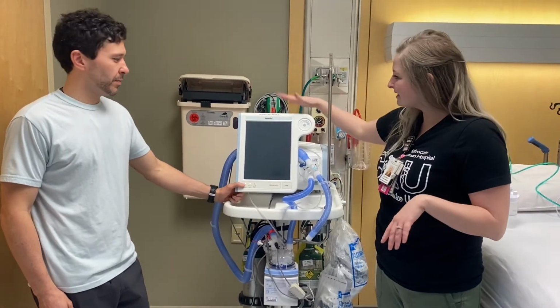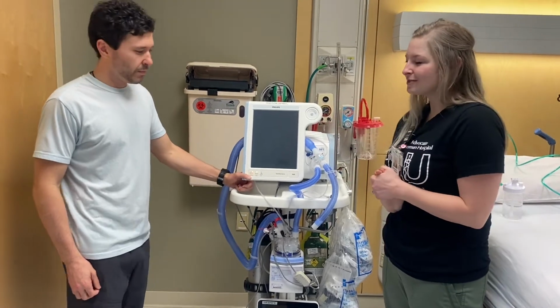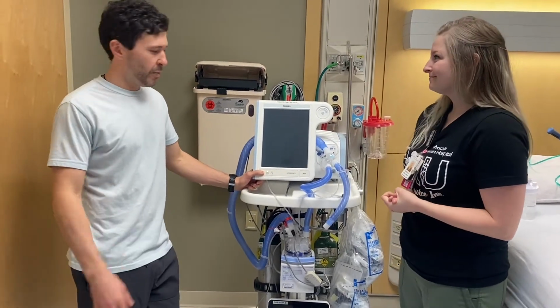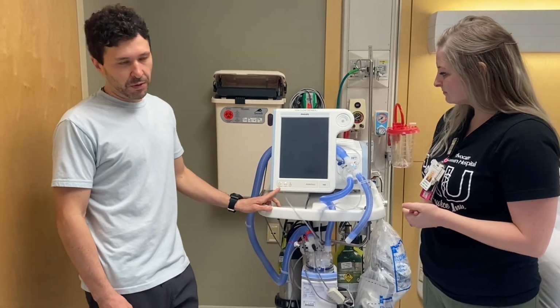Hello everyone. For this segment we have the Bipap machine that Reggie's gonna show us some basics on. Very basics. We'll keep it simple.